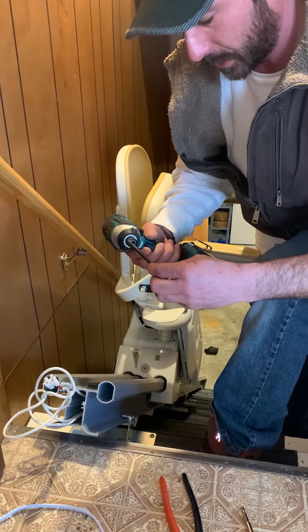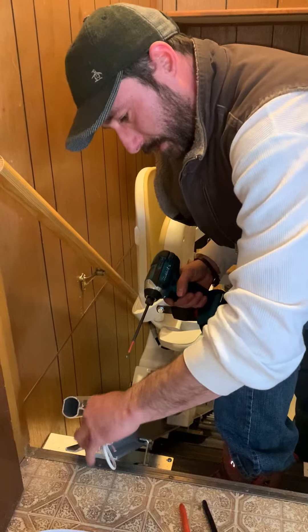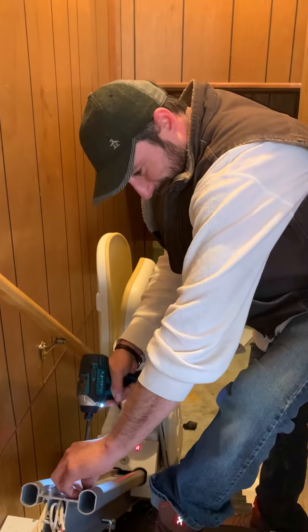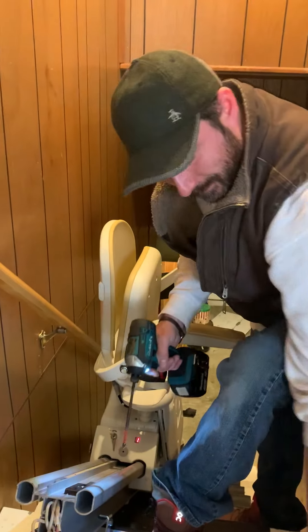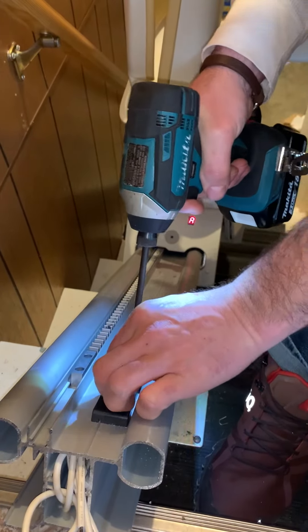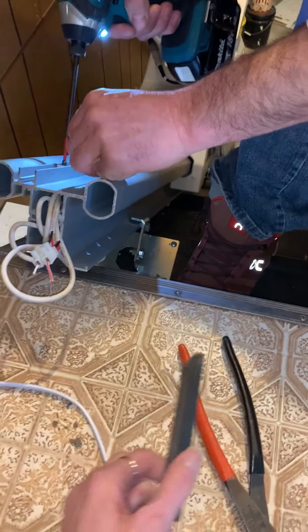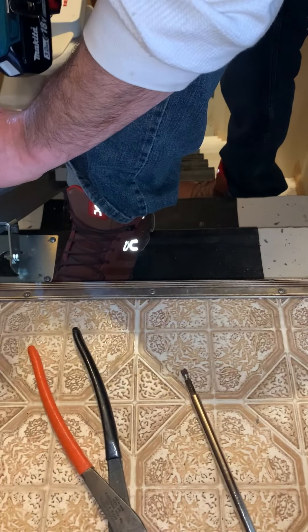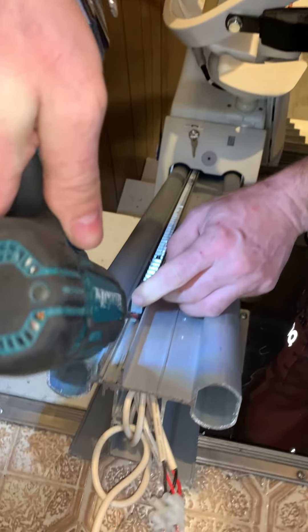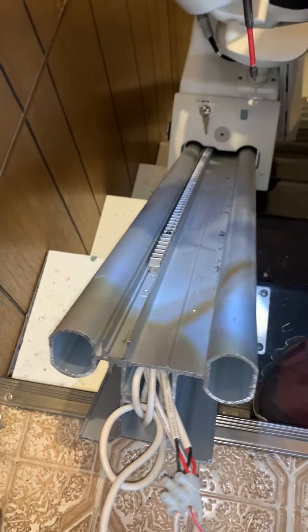Got a number two Phillips. Push that back inside there. Taking this off — this is the top limit cam. Taking off the mechanical stop, electrical stop — two parts. Sometimes I'll just take that in there and pry it out the rest of the way. Put that aside.